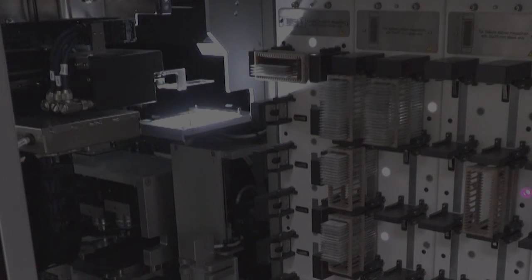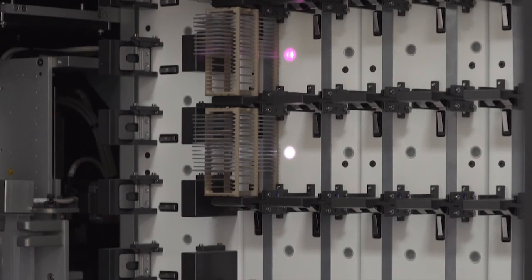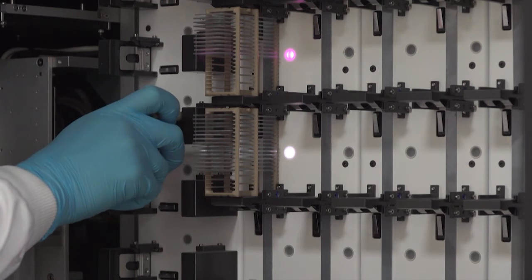This is where we gain overall throughput's advantage, because we can move and preview the slides separately from scanning. Once the preview is done, we just wait for the scan to finish.